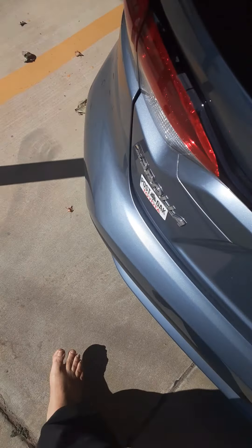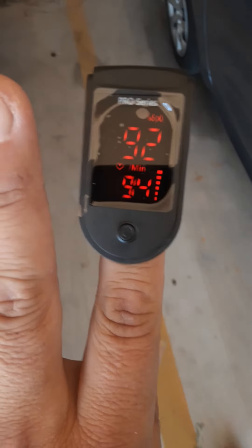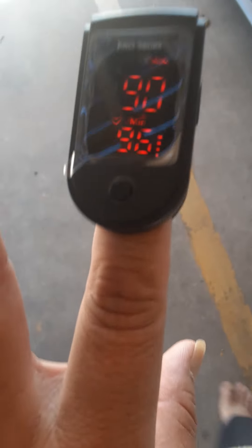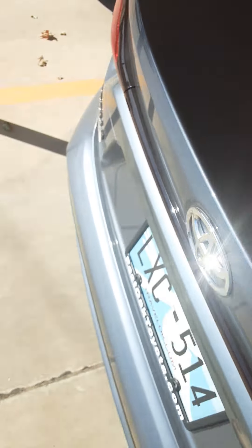I'm going to take it off just for a second so I can pull my pants up. Alright, let's see here. I placed it back on my finger — it's auto-on, so I just press the power button. Okay, it's resetting... checking... 92. So just getting up and walking over here to the car, it went down a couple points.